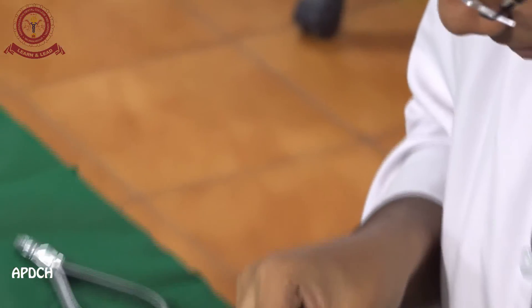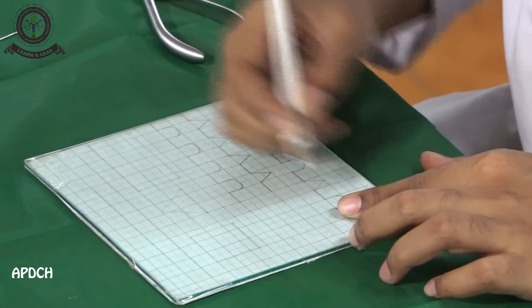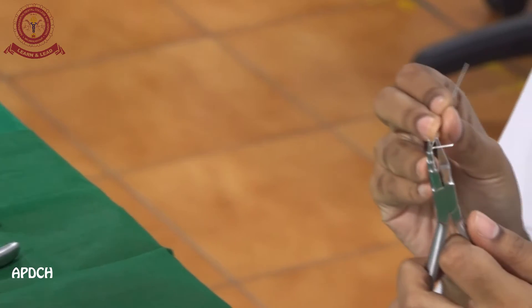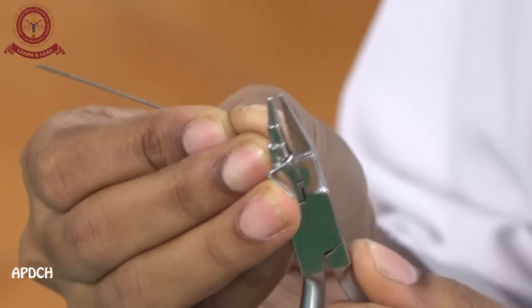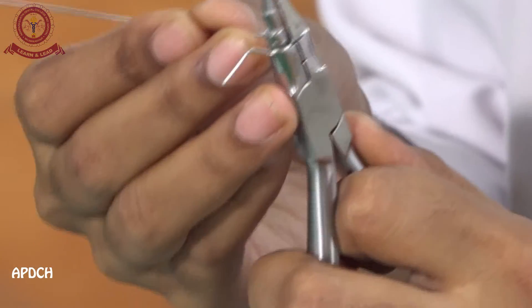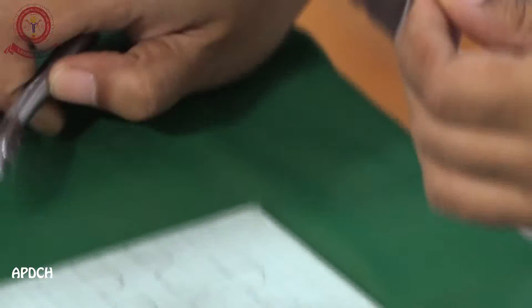Check it on the graph. Then again mark the wire, then make a U loop. We have to turn the plier and make a U loop. Then check with the graph and adjust it accordingly.